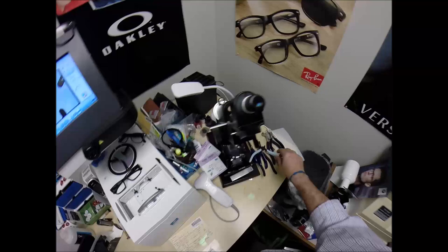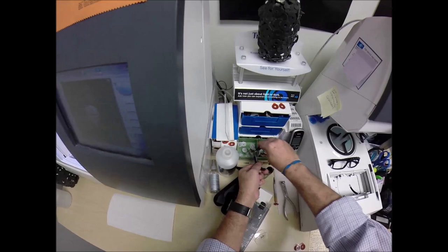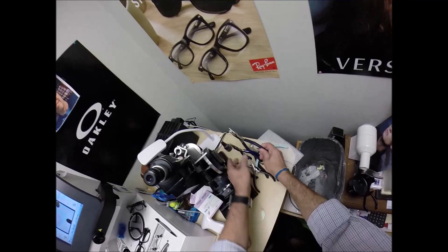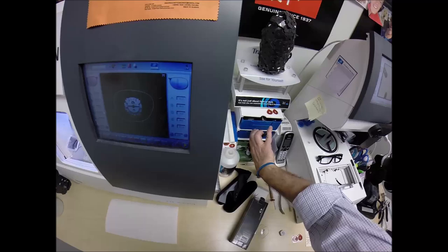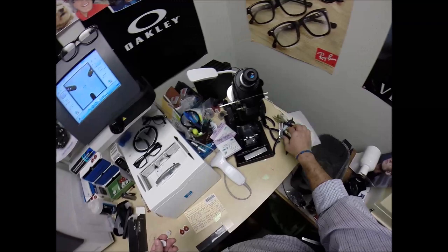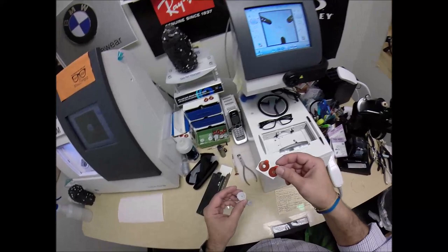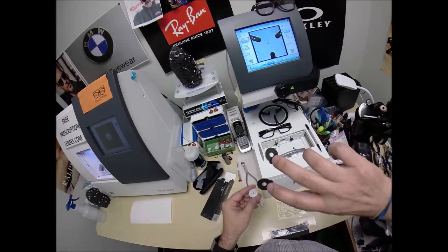I can't get these out of here, this is one of these days. Let's use this tool, reach in and grab one of these. Bobbing for blocks, alright there's one. Let's use another tool. The ink almost flew away. Let me grab one of these out of here. Now I could grab one that already have the blocks on there, that would be way too easy.